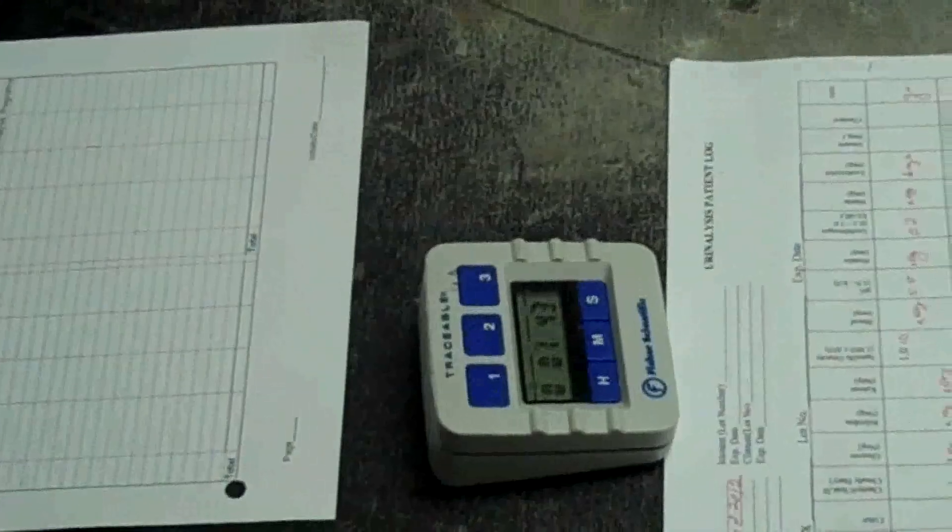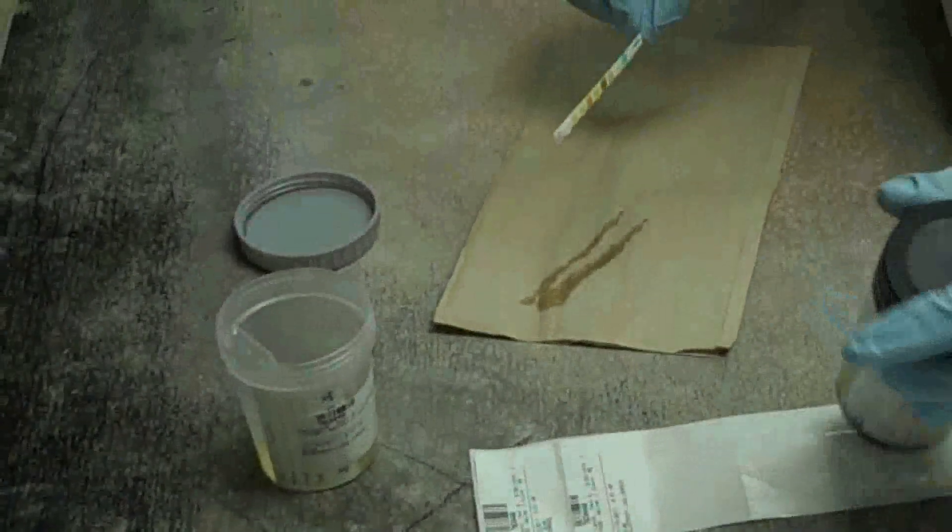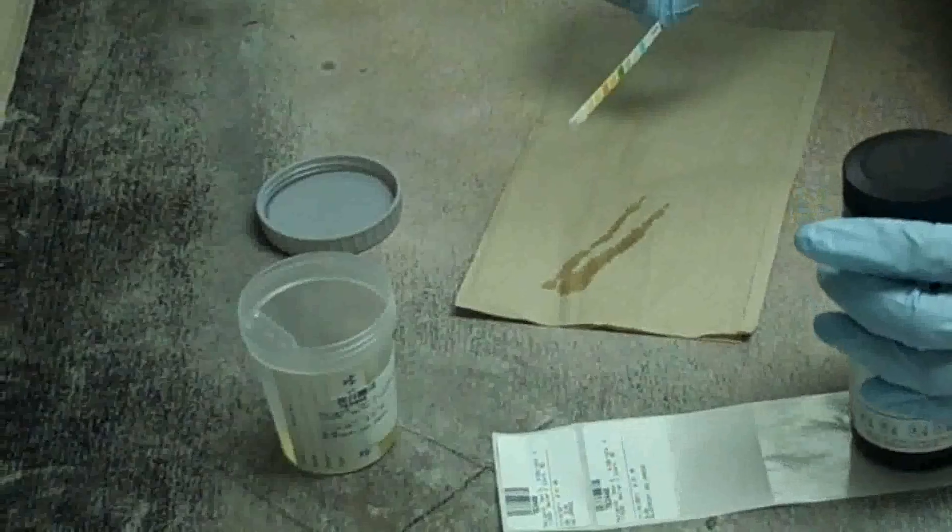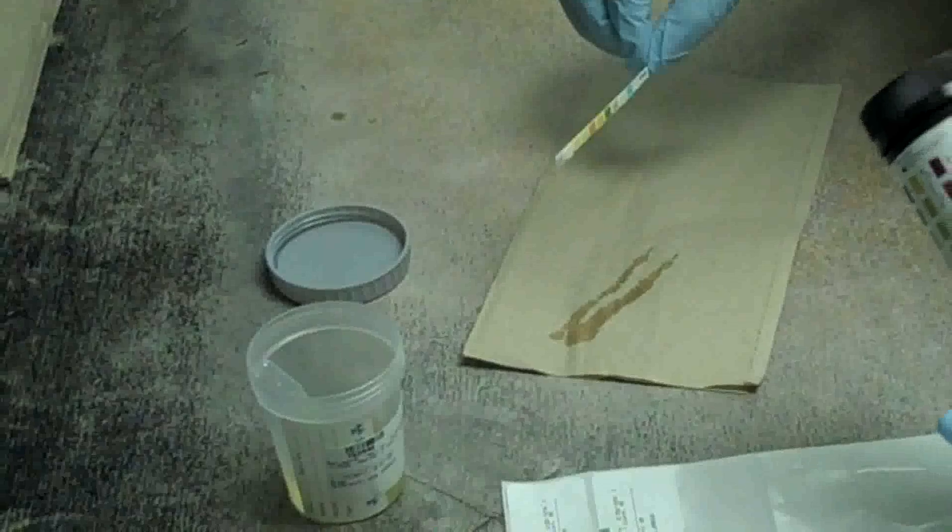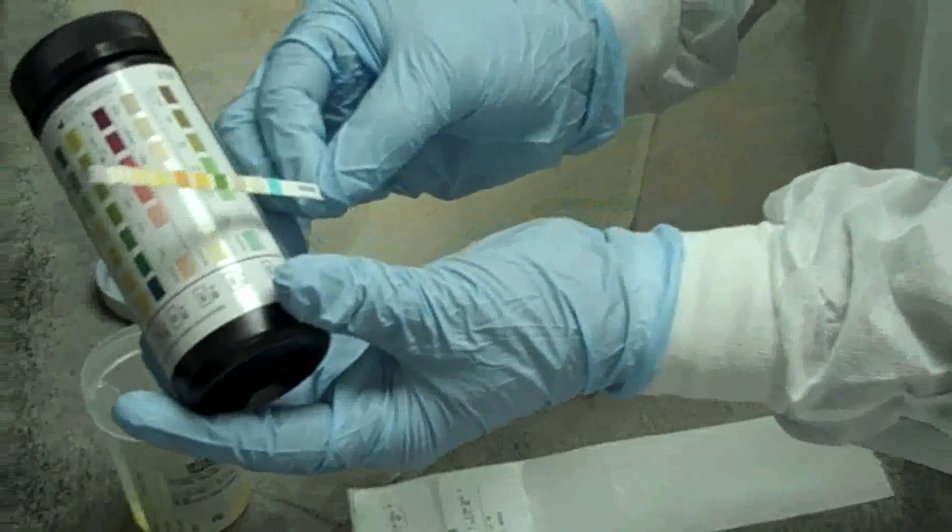Do not lay the pads on the paper towel or cover the pads with the paper towel. After 30 seconds, start reading the results. I will record the results as they are read.